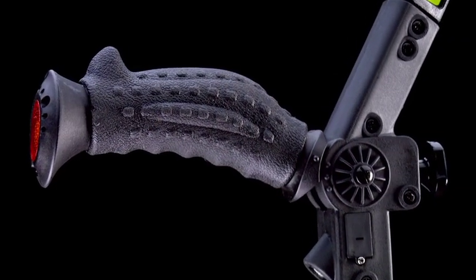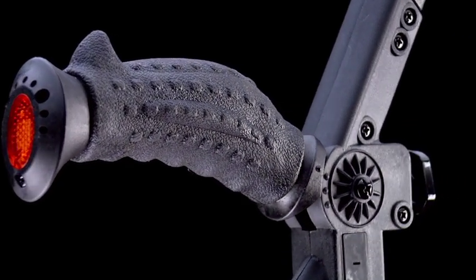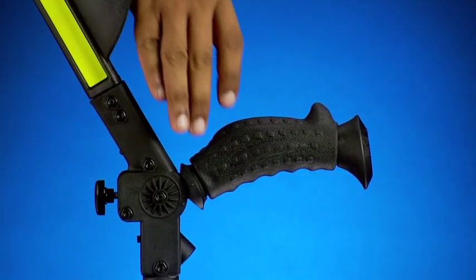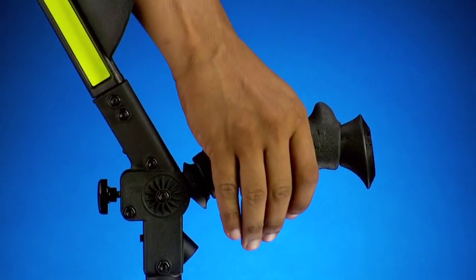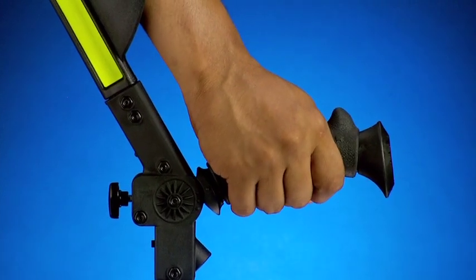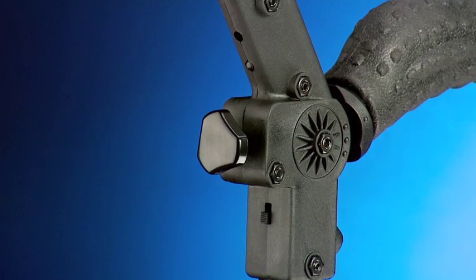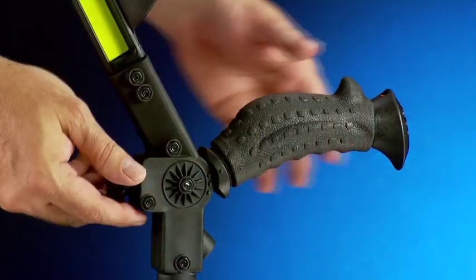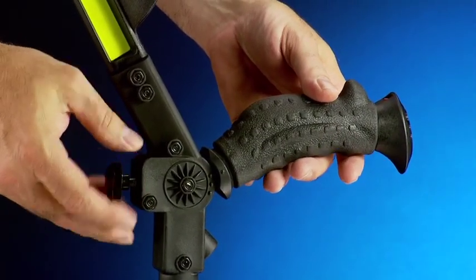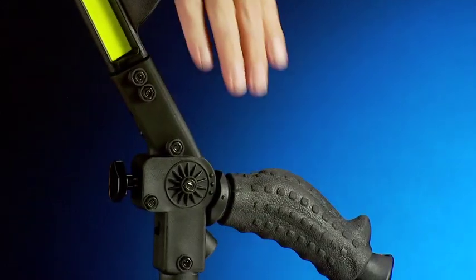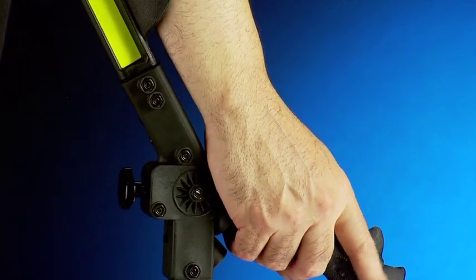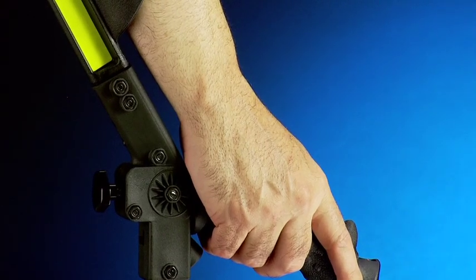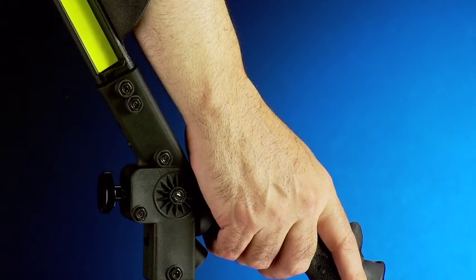The anatomic handle has been covered with a special soft silicone-based rubber, whose characteristics improve grip and also contribute to the reduction of shock and vibration. Given that each person has a different way of grabbing the handle, included is a mechanism to change the angle of the same, which can be adapted and customized for each user, providing greater comfort and better grip, reducing the fatigue of prolonged use.